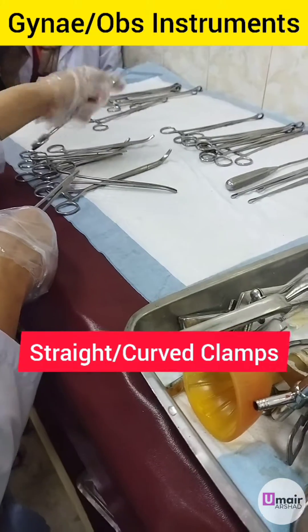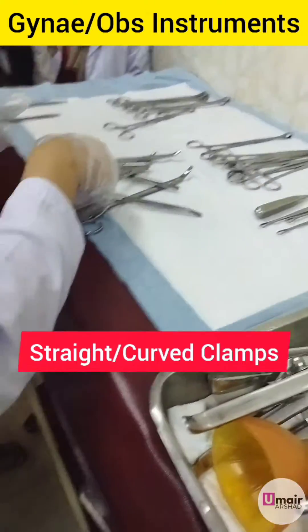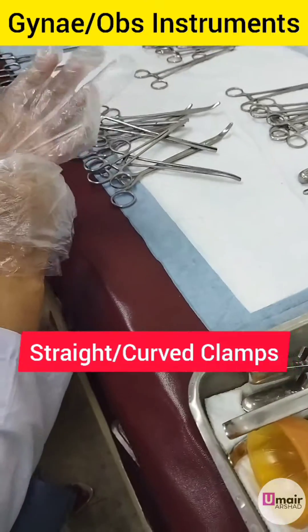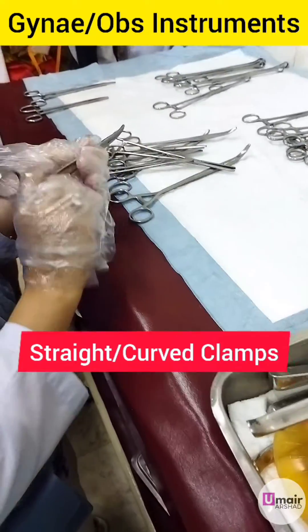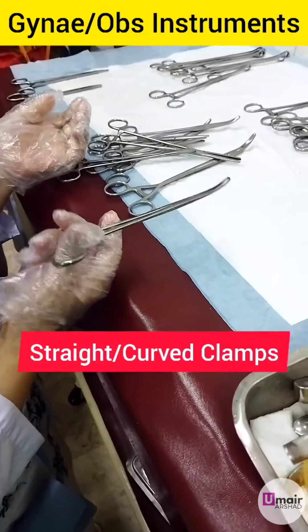This is a straight clamp and this is a curved clamp. These are curved clamps.